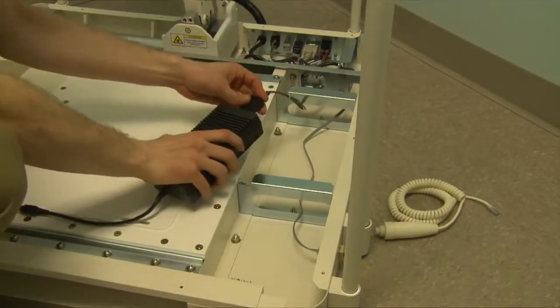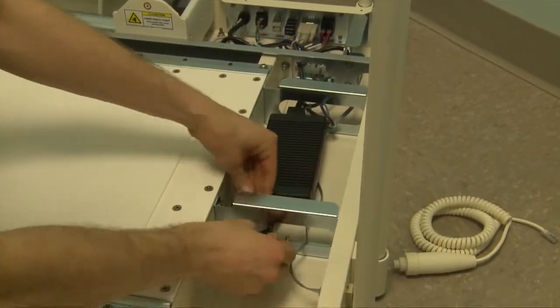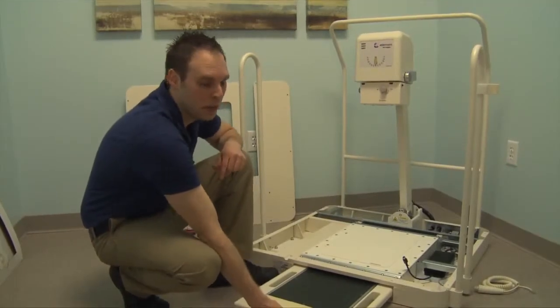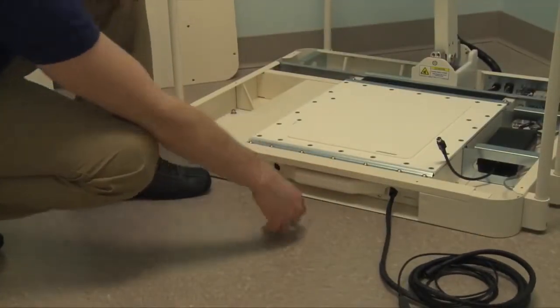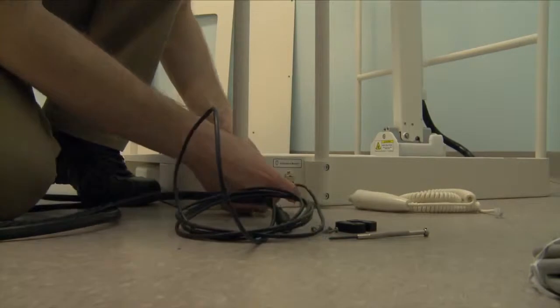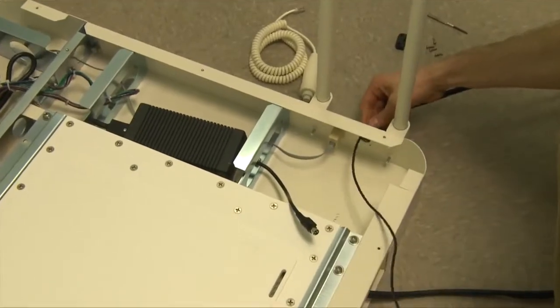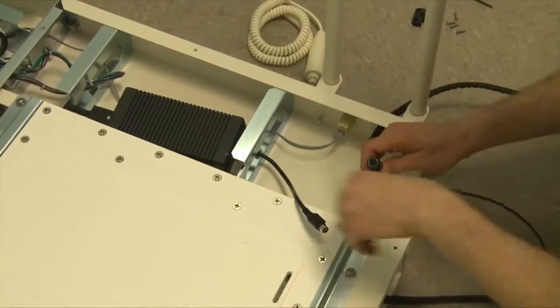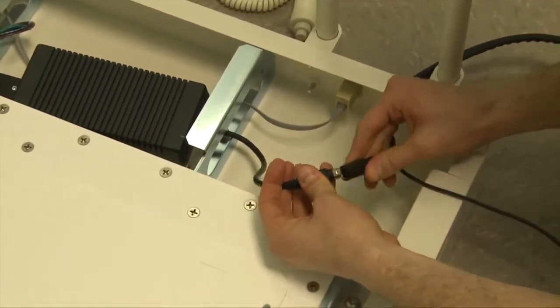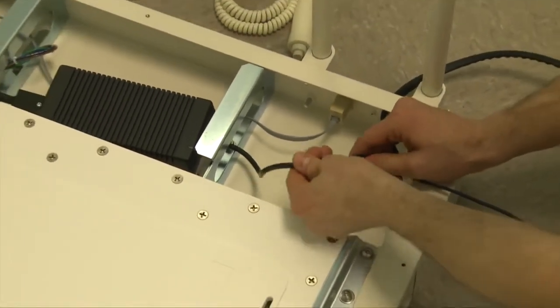Go ahead and plug it in. Run the cable through this opening. We'll now insert the panel into the base. We'll now unravel the cable. We're going to insert the cables from the outside of the base to the inside from the panel. We're going to connect the power of the panel together to the inside of the base — it'll snap together. Make sure it's nice and secure.